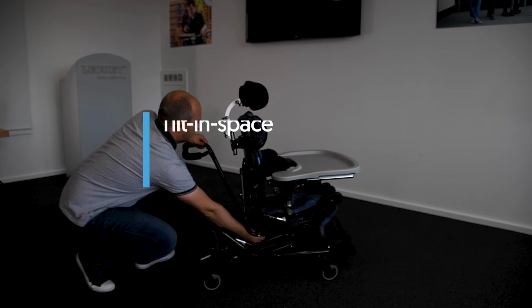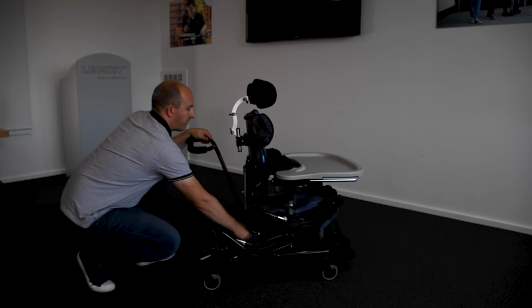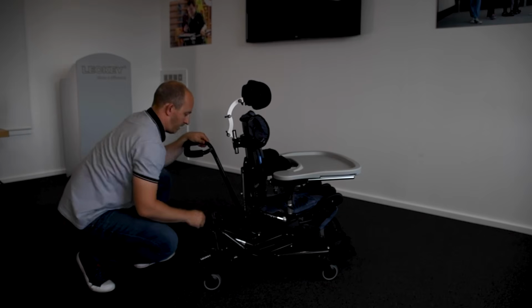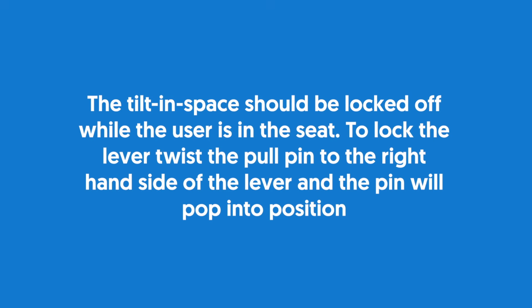Tilt in space. To adjust the tilt angle, press the lever under the seat base. Once you have selected the angle you require, by simply removing your hand from the lever, the chair will be locked in position. The tilt-in-space should be locked off while the user is in the seat.